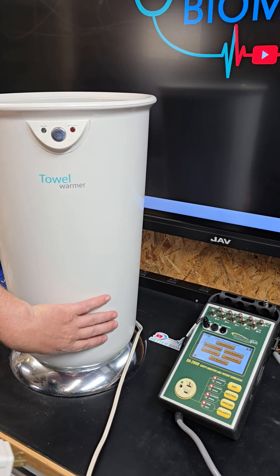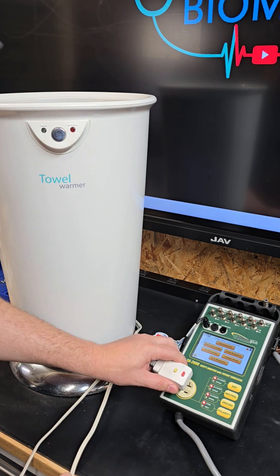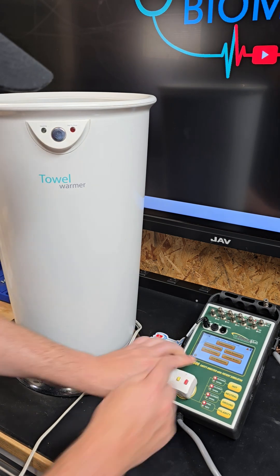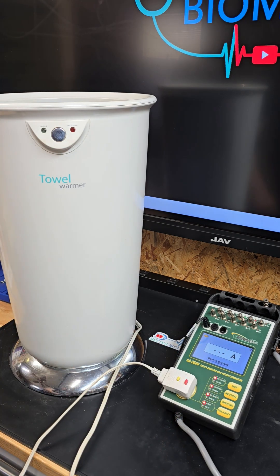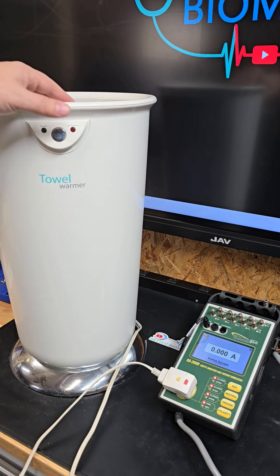This is a towel warmer, a generic device, but it still fits the bill because you're going to see very easily. We plug this in and put it on device current. I can now see what's going on inside the device, and notice there is zero amps.